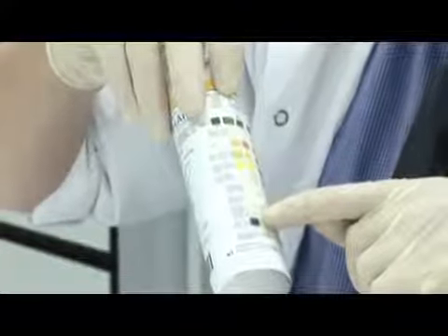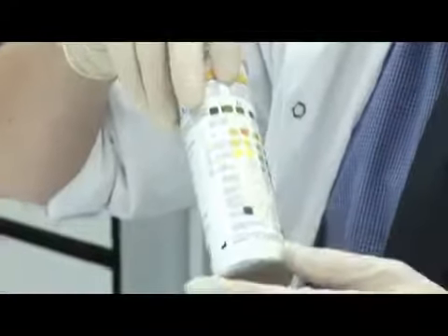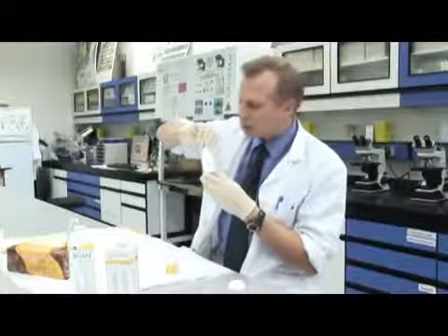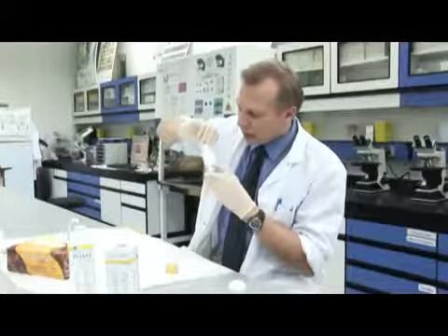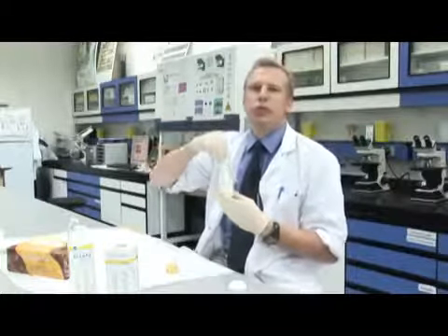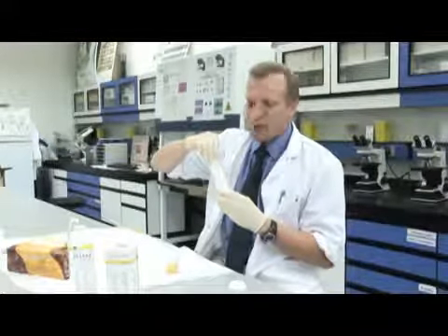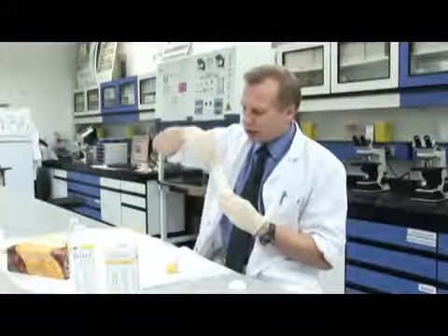So that's a nice pale green, that's a normal pH for urine. Glucose is normal, ketones are normal, and we have other tests, urobilinogen and bilirubin, which are used for liver function, and leukocytes are normal. So in this case, this person has some bleeding into the urine, but they don't seem to have infection or diabetes, and you might do some more tests on them to see where the bleeding is coming from, but it just gives an initial indication.